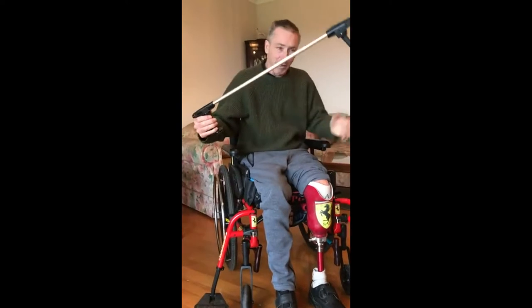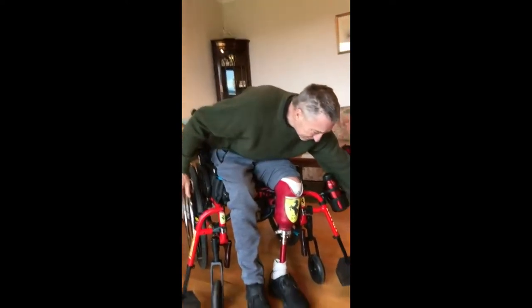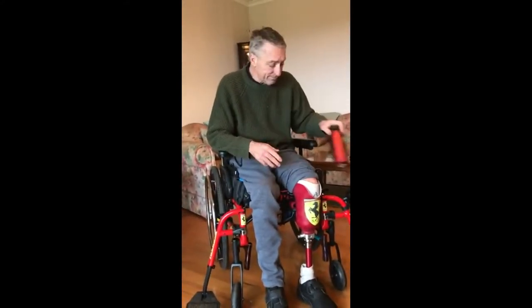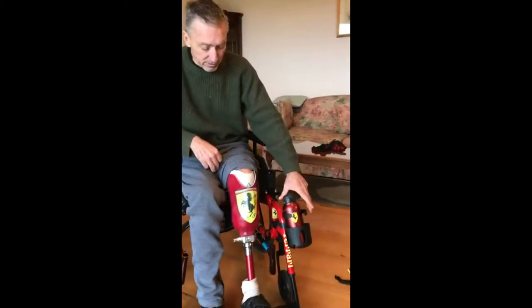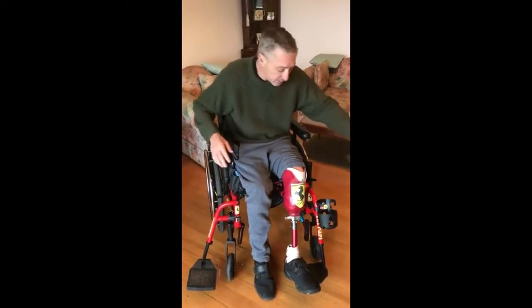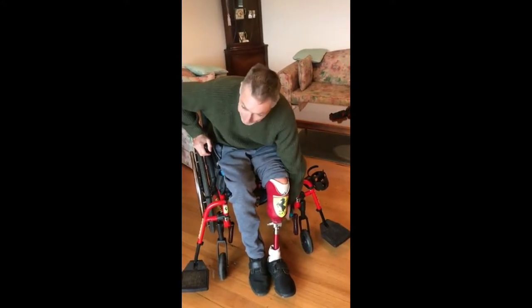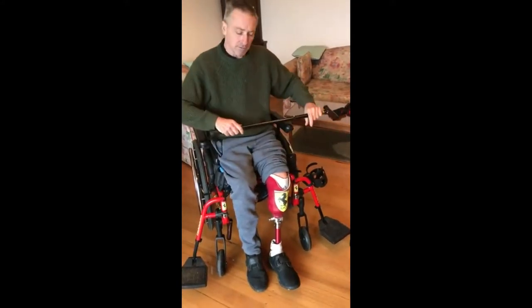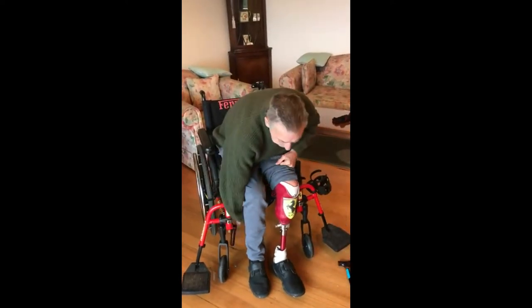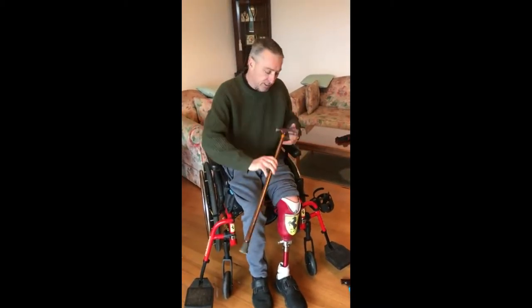Very simple — a grabber. Everyone has one of these, we all know what they are. A drink bottle — it's very easy, it mounts onto the leg. It can take a two-litre bottle or a small cup. For those good days when I can walk, I have one adjustable walking stick to suit what I need to do. But as I'm an amputee on one leg with a second leg with a drop foot, I have my second stick as well.